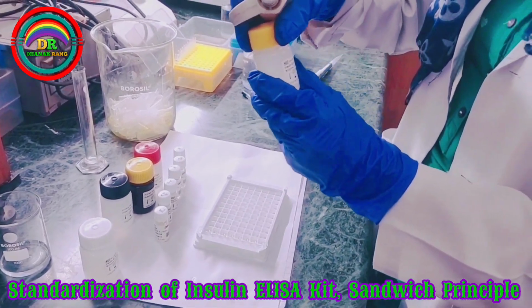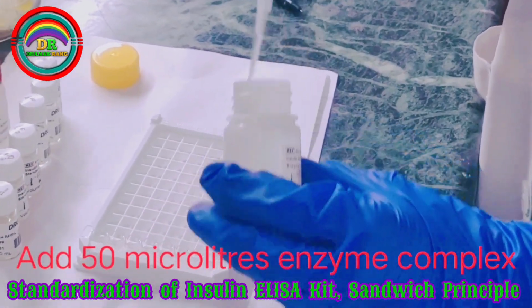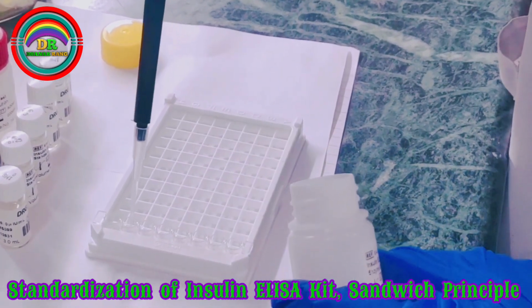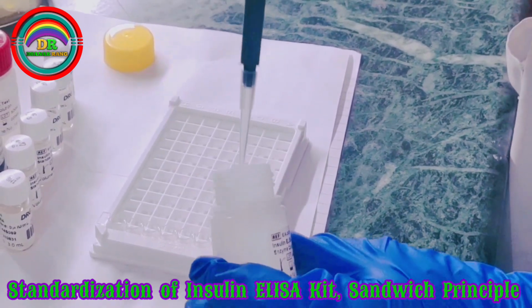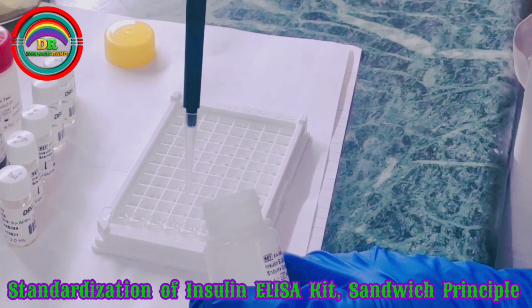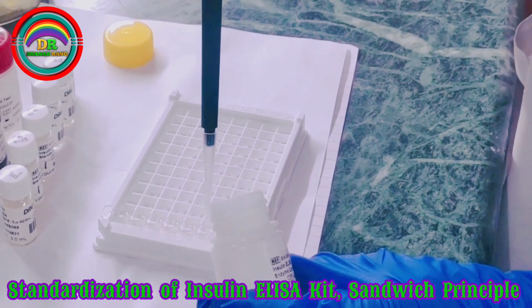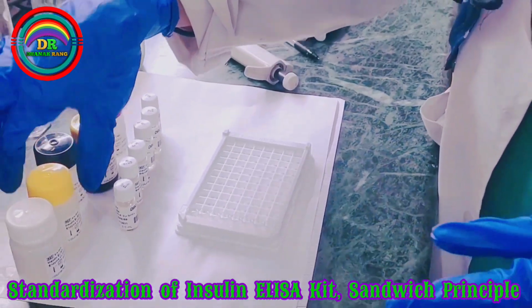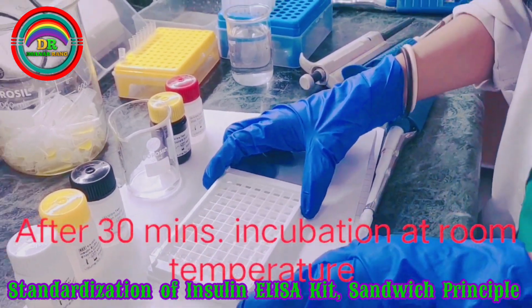Now we'll add the enzyme complex, 50 microliters in each well. And then we'll again incubate it for 30 minutes. Now we'll again do the washing.